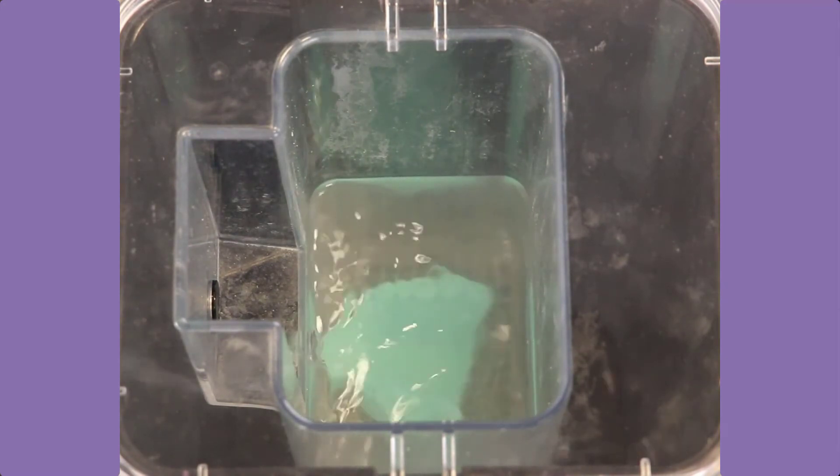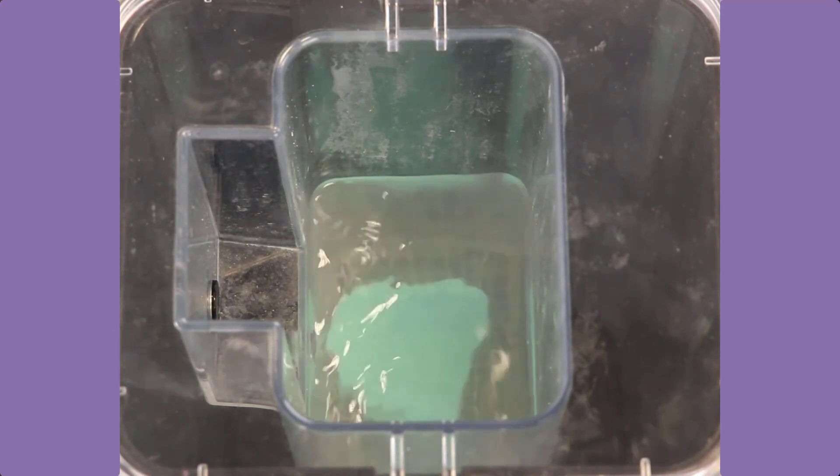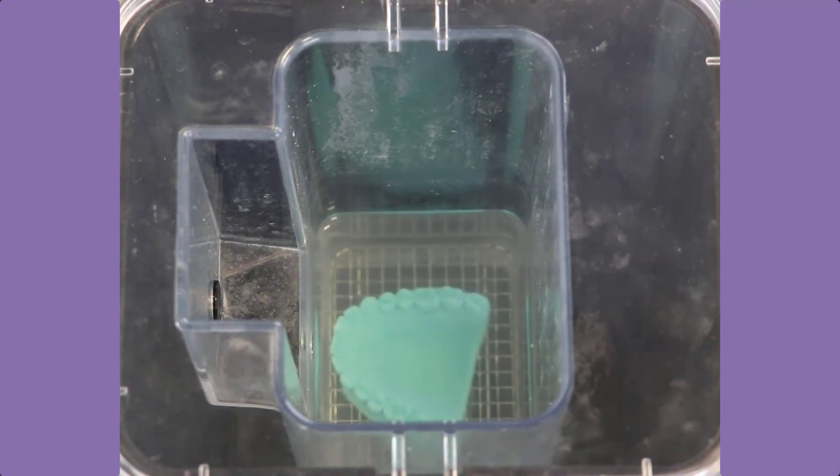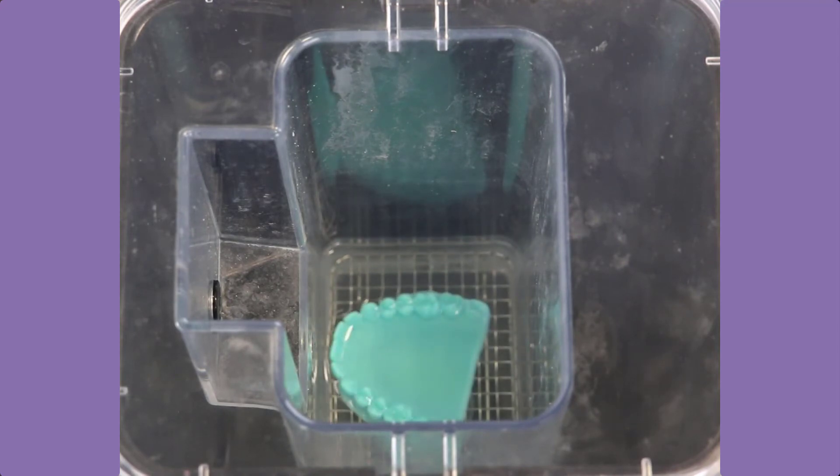For a more detailed description of the use of the cara print clean, you will find a video on the Kulzer YouTube channel under the keyword cara print clean installation and application.